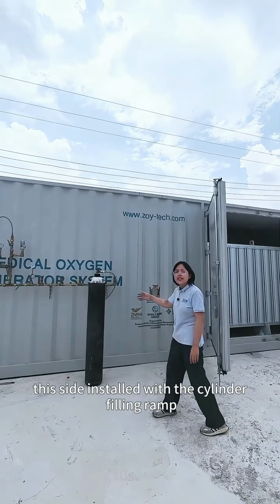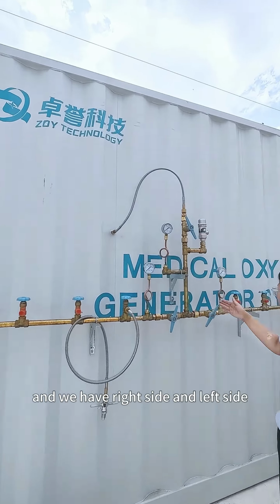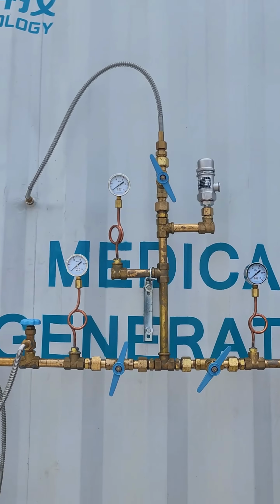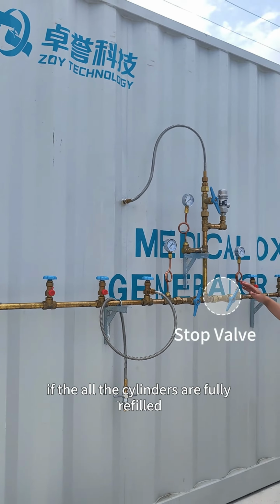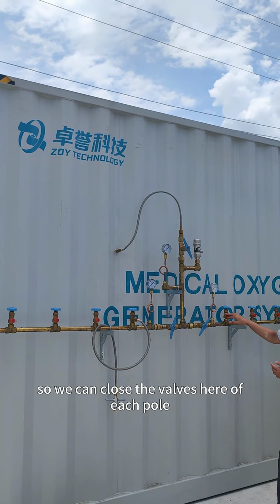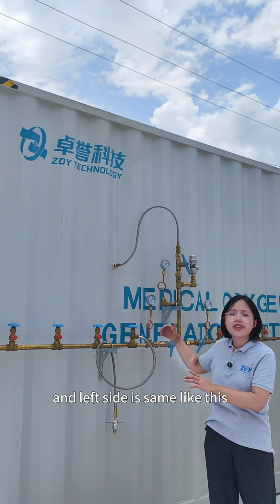This side is installed with the cylinder filling ramps. The high pressure oxygen comes from here, and we have the right side and left side. This is the pressure gauge of the filling oxygen, so we can read the pressure of the oxygen coming to this side, and this is the stop valve. If all the cylinders are fully refilled, we can close the valves here of each port and close this stop valve, and oxygen will not come into this side. And the left side is the same as this.